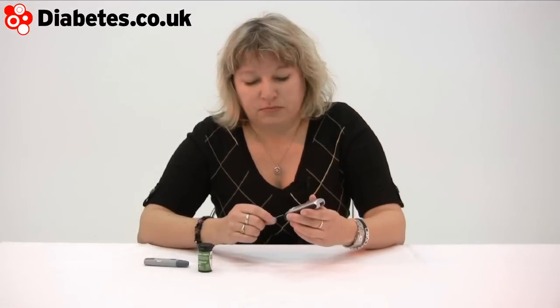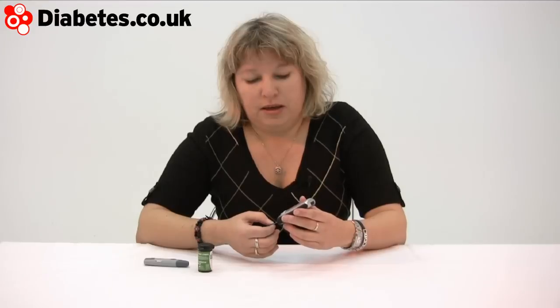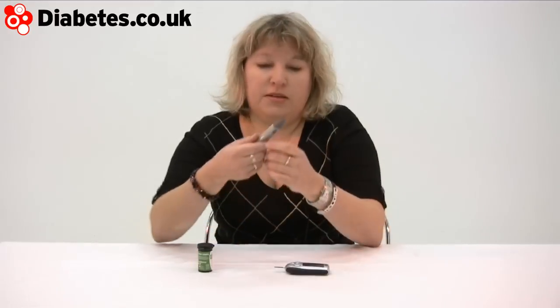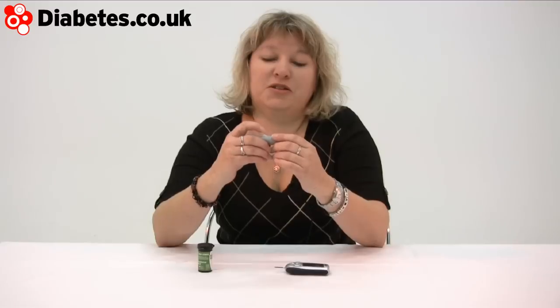With this little machine I'm just gonna do a blood test to show you how it works. It's got a big screen which is kind of handy. There's your big flashing dollop of blood sign. The lancing device is quite entertaining — it looks like a kazoo or something.